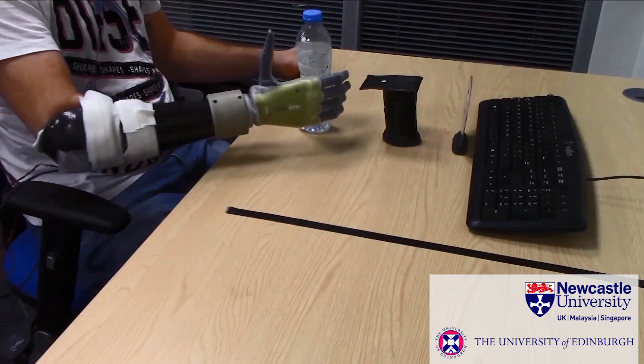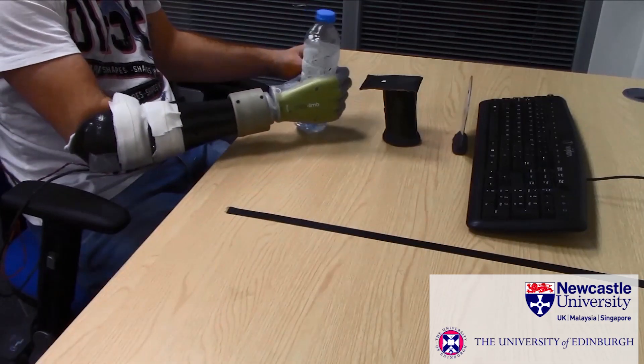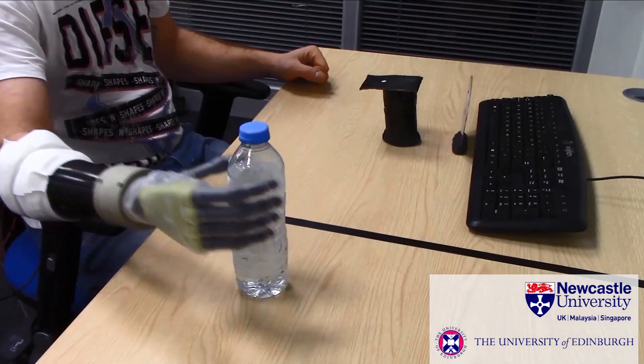If we can provide technologies that improve the control of prosthetic hands, then we can help people to regain some of their lost independence. What we're trying to achieve in our work is natural intuitive control of prosthetic hands.